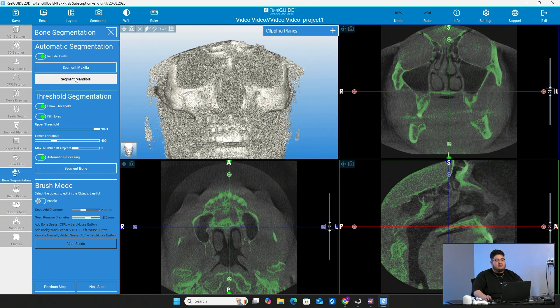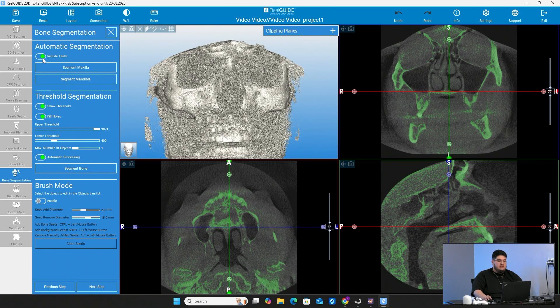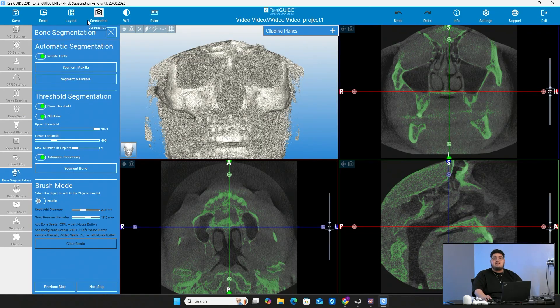What we want to do is just go ahead and do the upper right off the bat. You have two options: maxilla and mandibular. We want to do the maxilla — the upper. You'll also notice up top, right above that, there is one option you can turn on and off: whether or not you want to include the teeth in your segmentation. Totally up to you. When you do the bone cut, the teeth will be taken away. It depends on your workflow — maybe you want to print out an STL of the bone and want it to have the teeth, or not. For us, we'll do it with the teeth still in place, so we're going to go ahead and segment the maxilla.